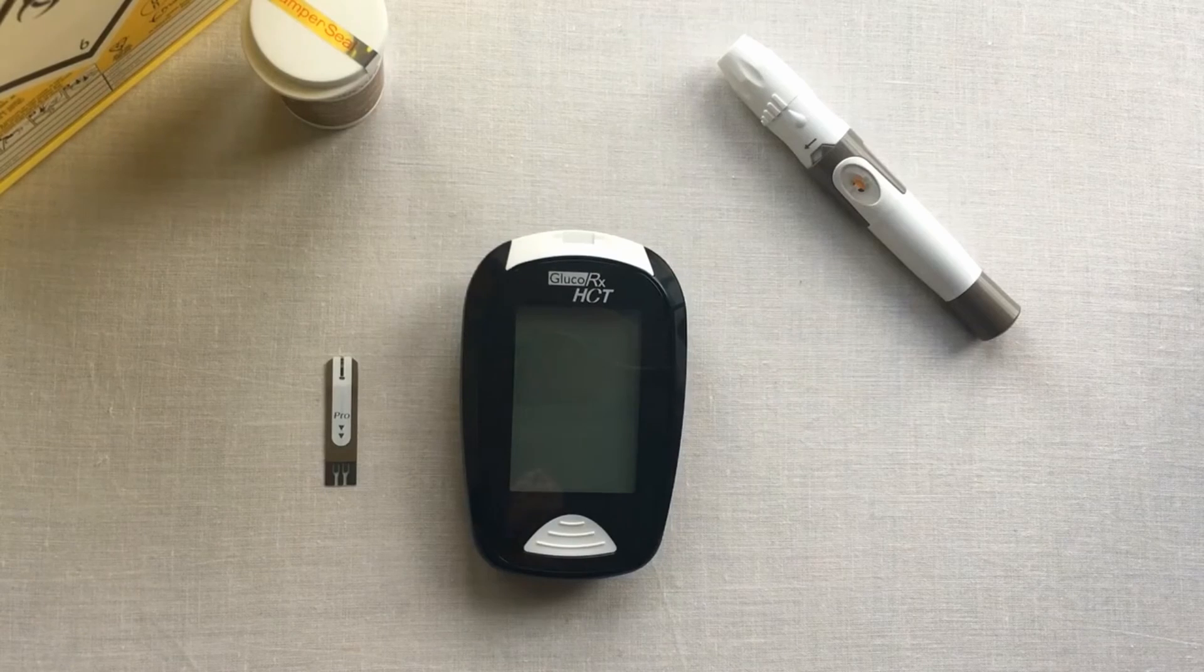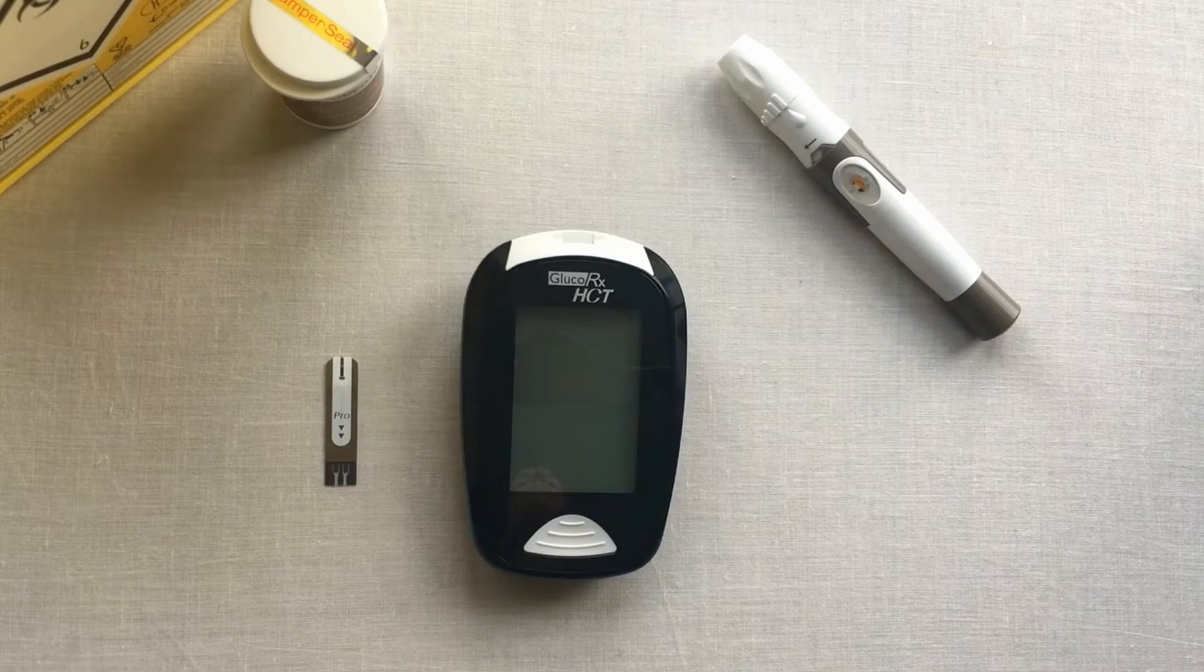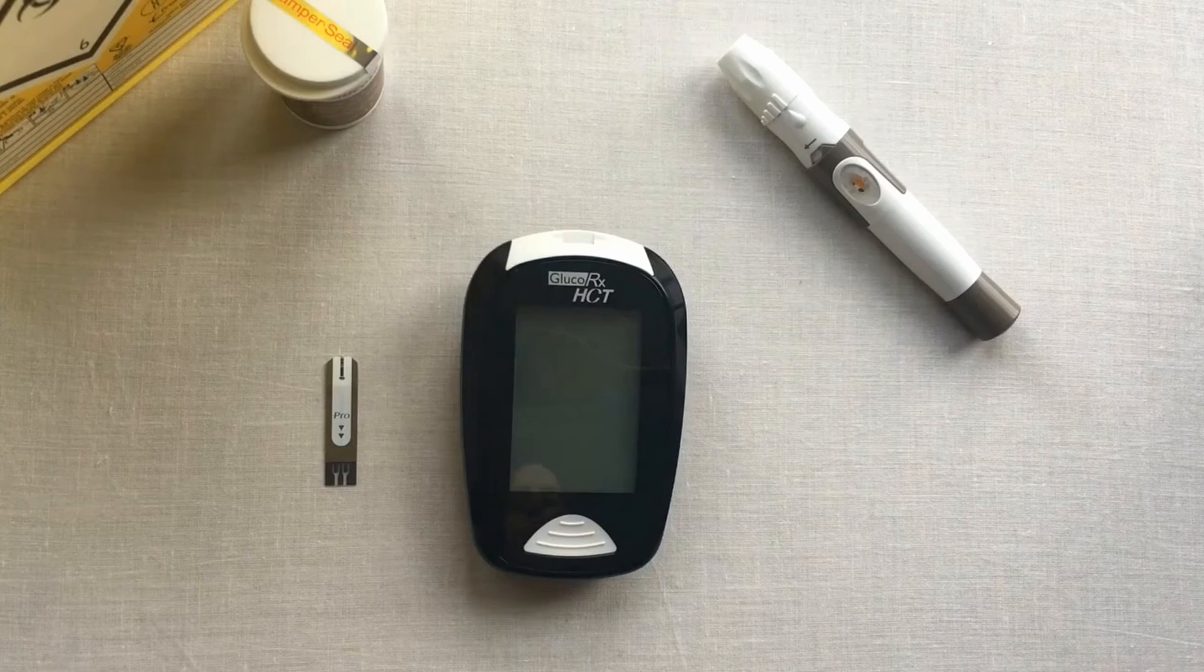Welcome to the demo video for our Glucorx HCT meter. Today we will be covering how to take a blood glucose test.